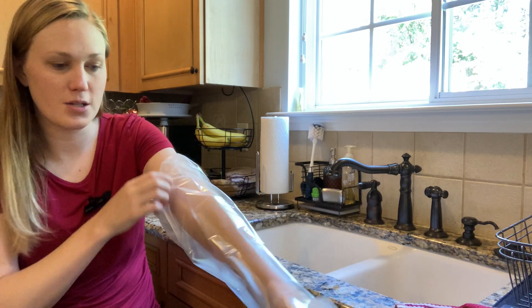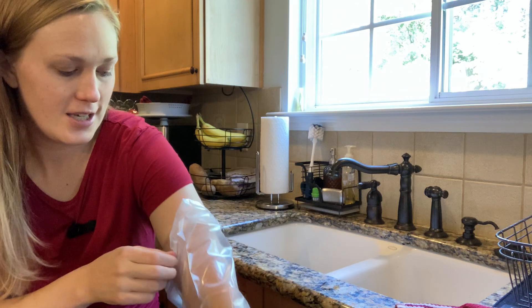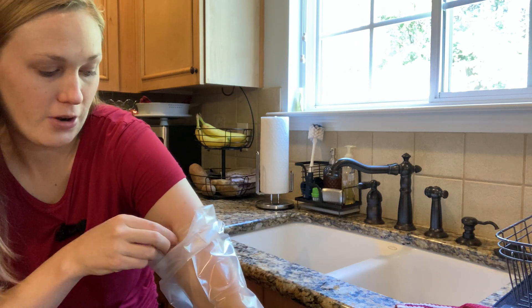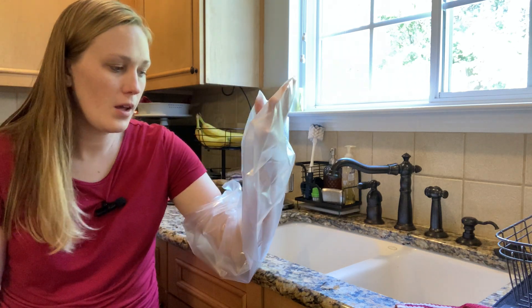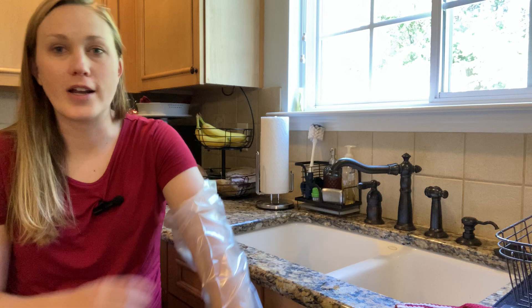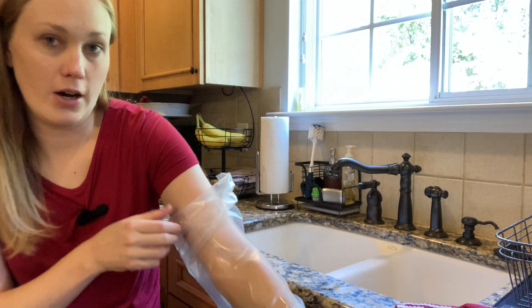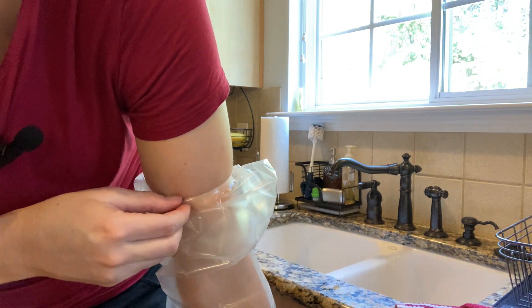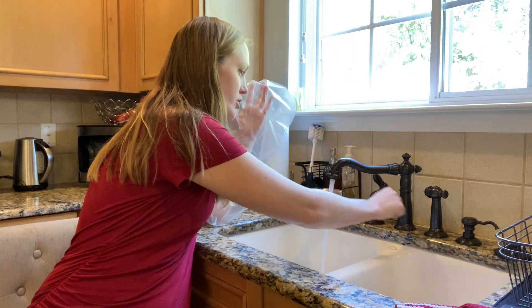It's tight against my arm, and I don't even have a cast on it right now. I can see how it seals — it kind of is just tight around your bicep there. I don't think anything would be able to get in, but we're going to spray and find out. As with any barrier, I would just be careful not to stand there and tempt fate. It's not uncomfortably tight, but it's definitely tight enough to keep water out. So we're going to turn my sink on and check this out.